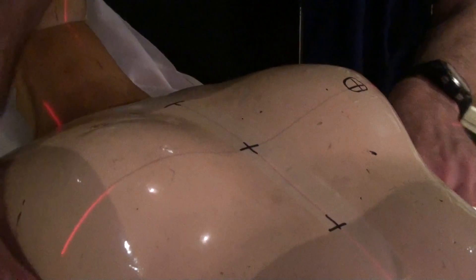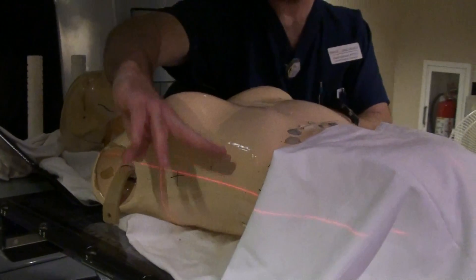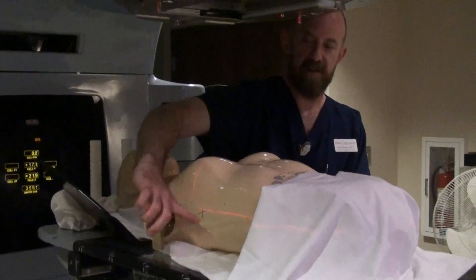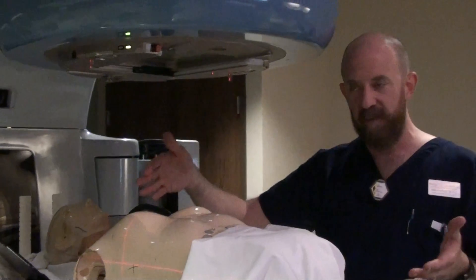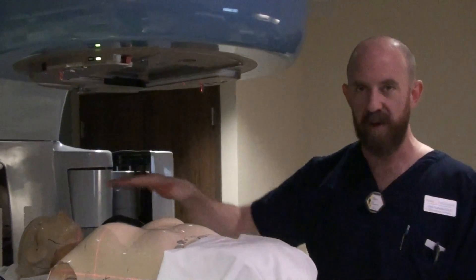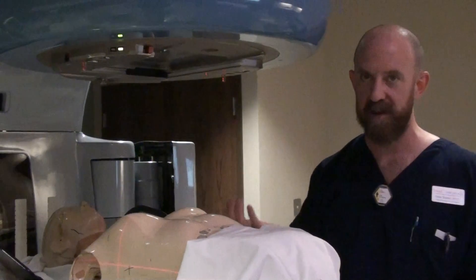You've got her level with your side-level marks. You might just have a stripe painted on the patient — you can use that part of the laser, not necessarily the CR of the laser, but that part of the laser, and then a three-point in-line setup here. That's going to at least give you more confidence that you actually had the patient lined up in three dimensions than you would otherwise, because it's a lot more difficult with the person's arms at their sides.